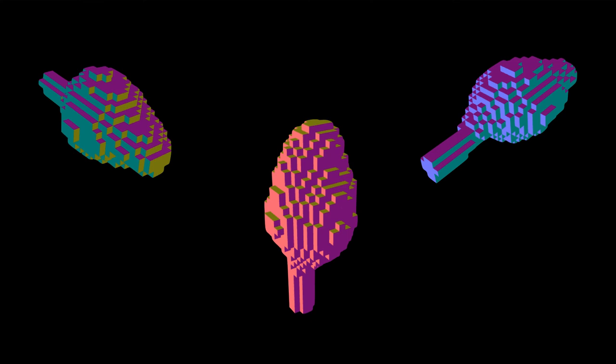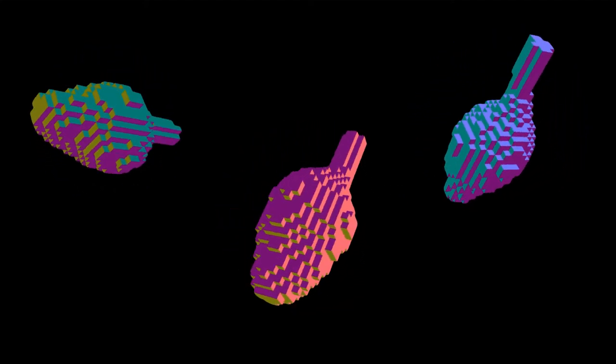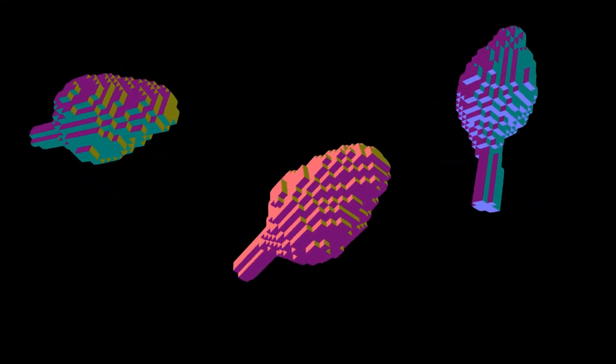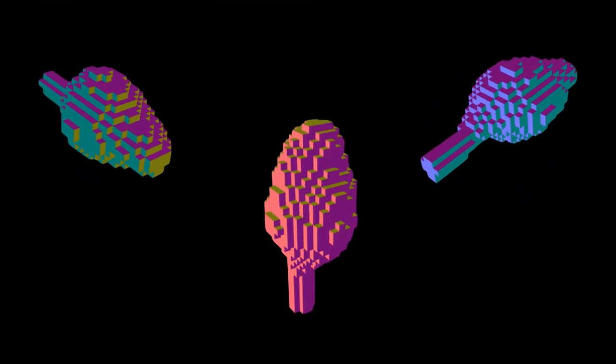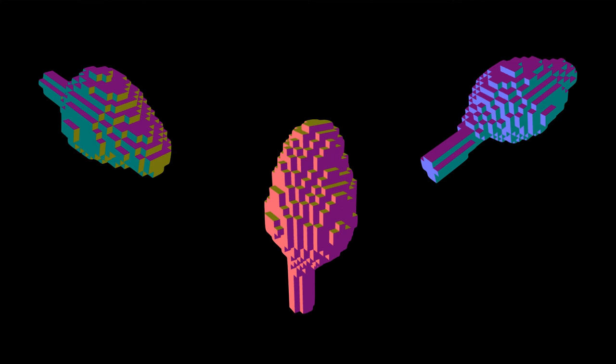Using computer vision techniques, we were able to extract the general shape of the spermatozoan in each image. We then scanned through a grid of points in a three-dimensional volume, and for each point we checked if it was contained inside or outside the shape of the spermatozoan in every image. We were able to trim away, or space carve, the volume in space corresponding to the spermatozoan, yielding a series of small cubes, or voxels, that were representative of the spermatozoan.